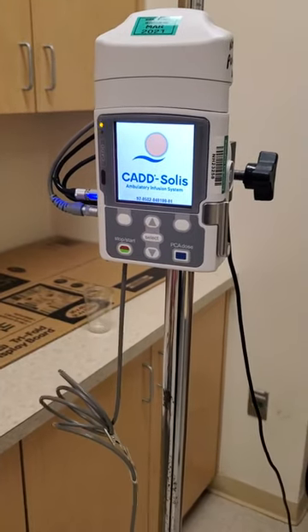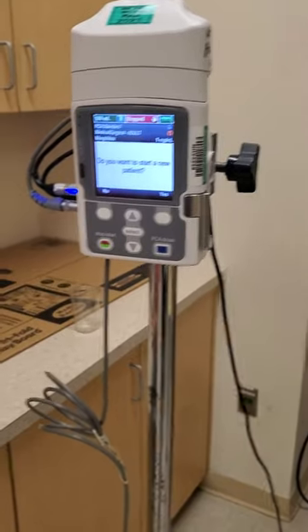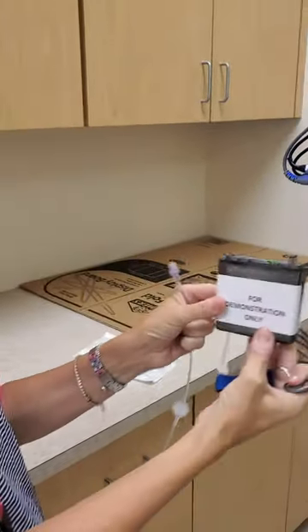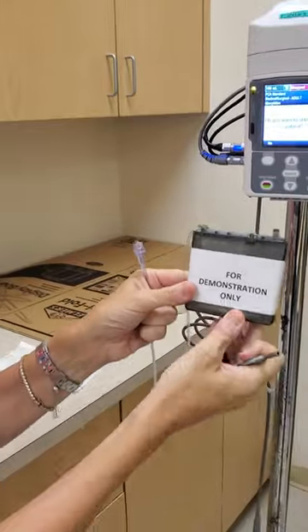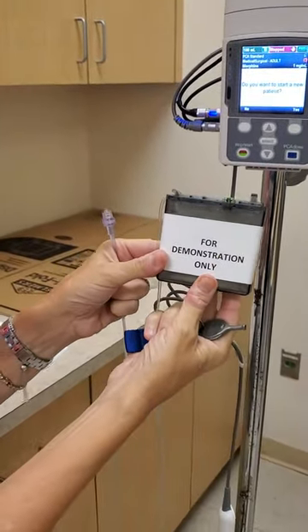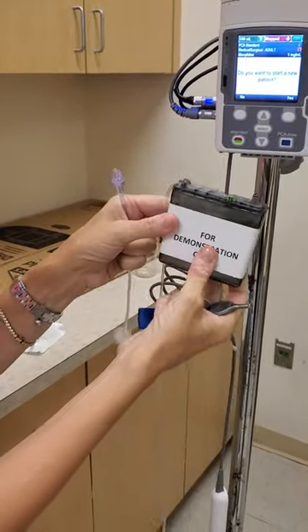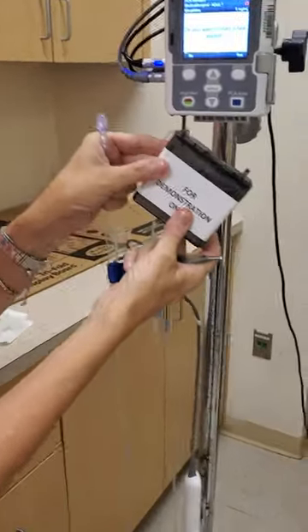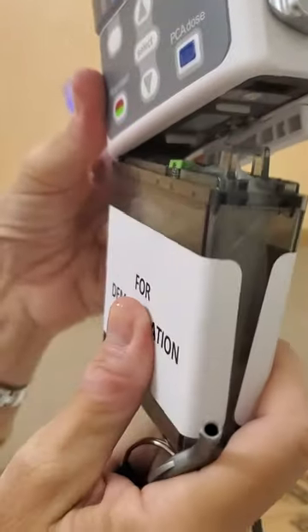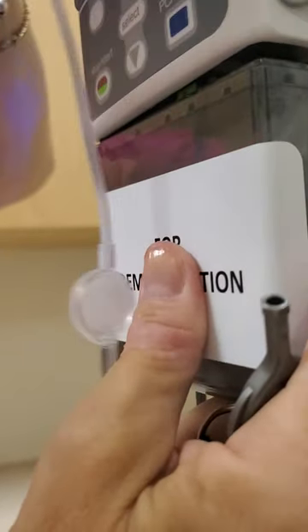Before I begin, I'm going to attach my cassette — this is for demonstration purposes only. It would normally have the medication name on it and the barcode for you to scan. There are some little hooks right underneath there; you hook that and then push up until you hear the click.